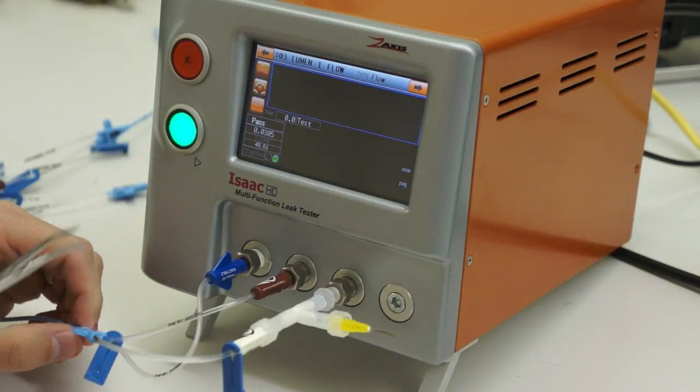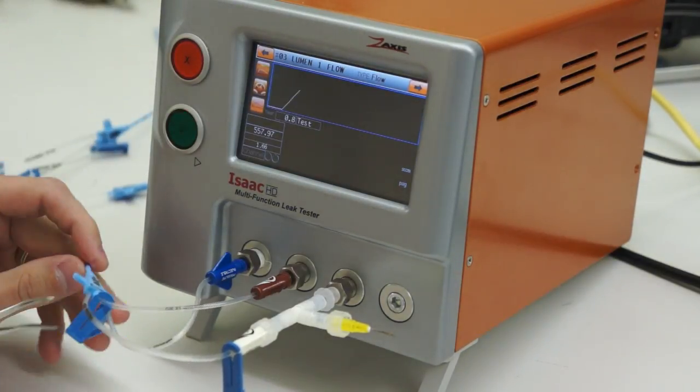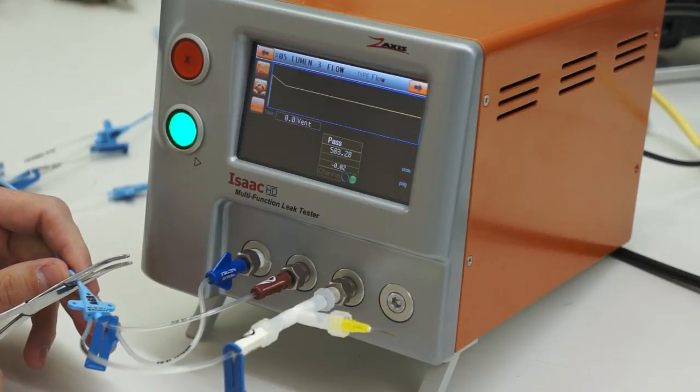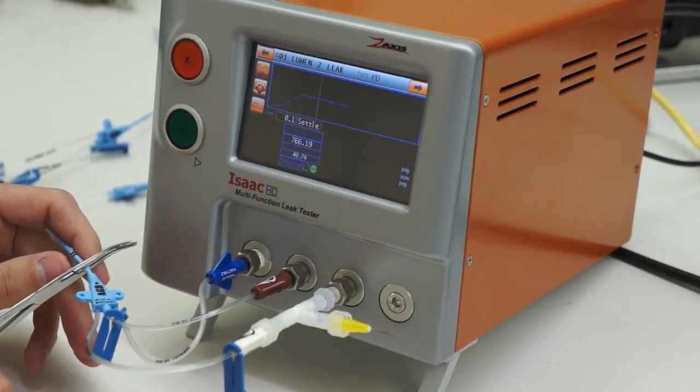I'm going to start the flow tests again. It will redo the three flow tests in sequence. Now it's doing the leak tests.